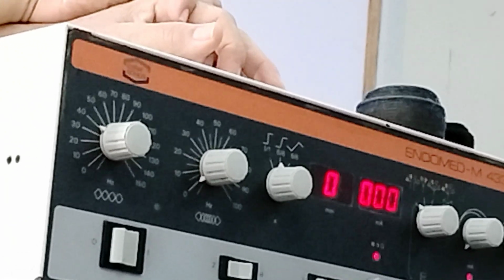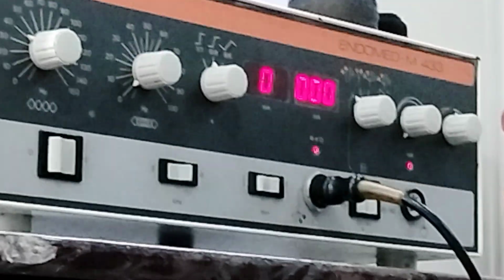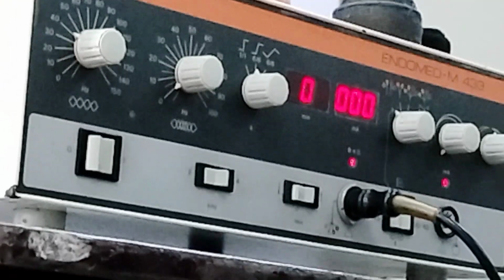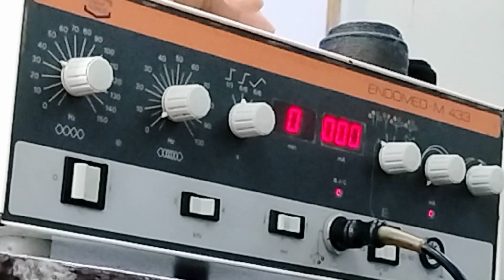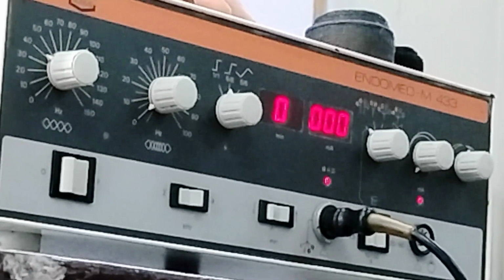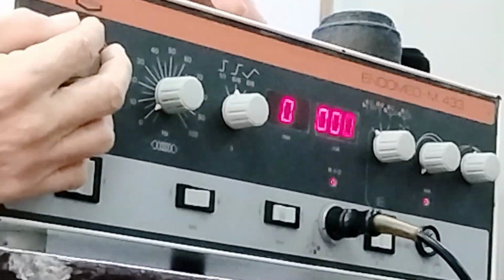When you choose, for example, 7 Hertz, it would always remain 7 Hertz. If you have 1 to 100 Hertz constant, just choose values between 1 to 100, and whatever you choose will remain constant.